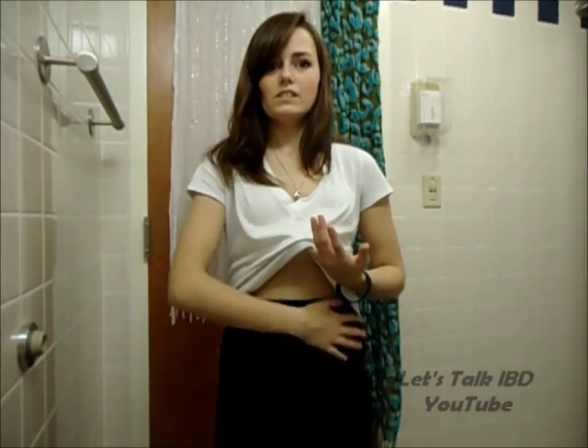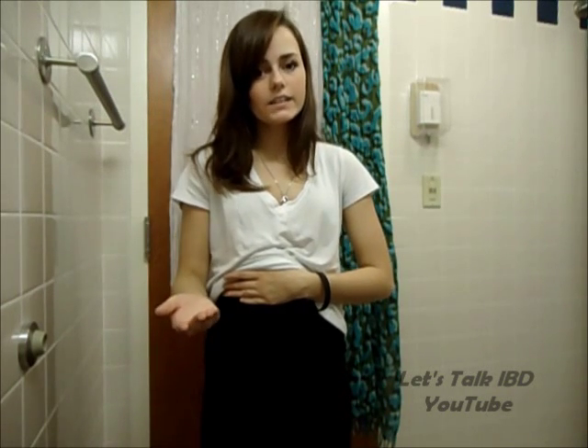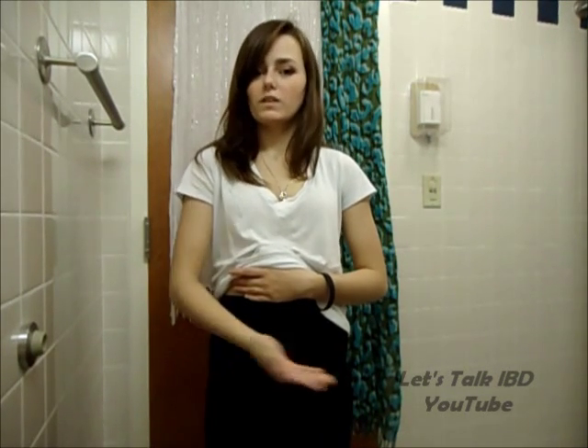This is very cool and dry, there's no sweating involved, because it is another layer to add. It also reduces leaks, because it holds your ostomy on. You can wear this at night, too, or under your clothing during the day. This is an everyday item.